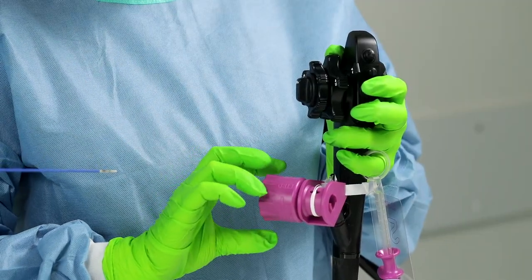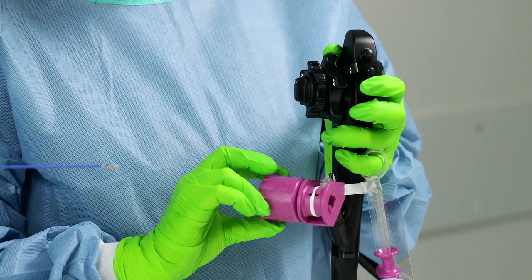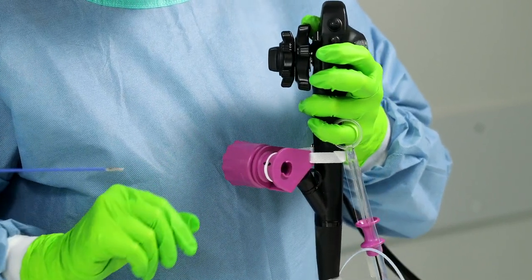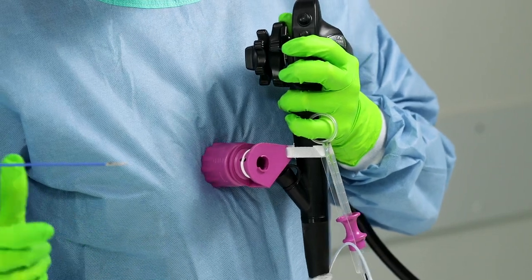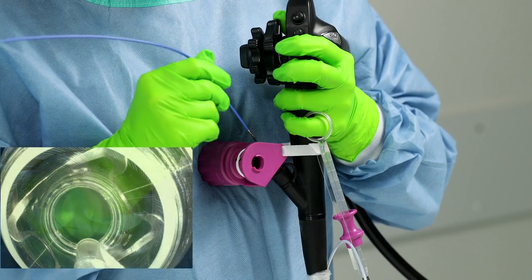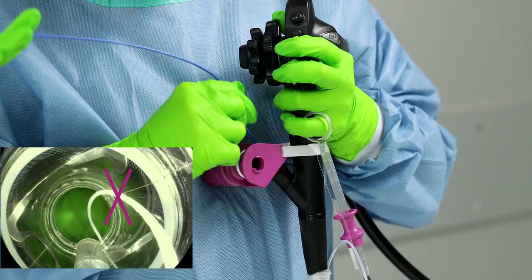Therefore, the release thread should be wound up by turning the handwheel clockwise until a slight tension can be felt. Should the thread become loose when inserting the grasper, the handwheel can be pressed against the upper body to prevent the thread from unrolling or becoming slack.